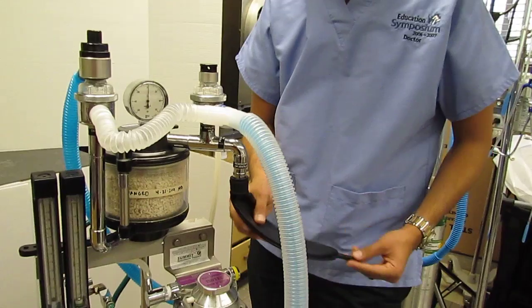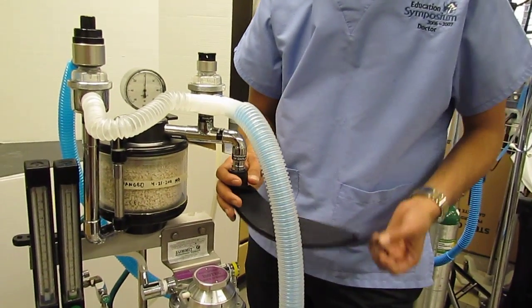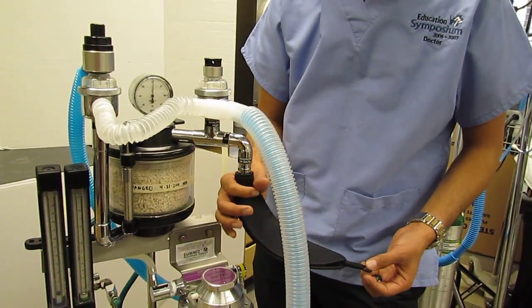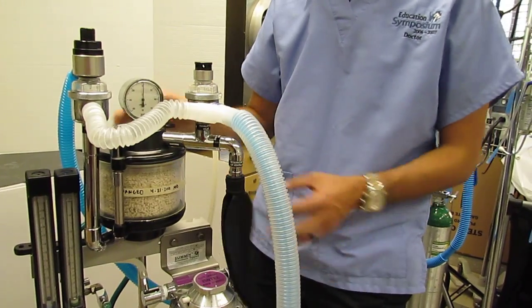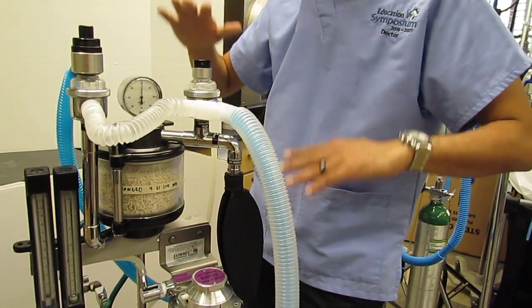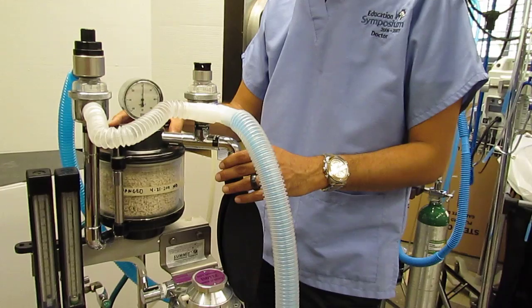This bag is called a reservoir bag. Its purpose is to catch or to trap excess air in the system so that we don't get large fluctuations of pressure in the system, okay?